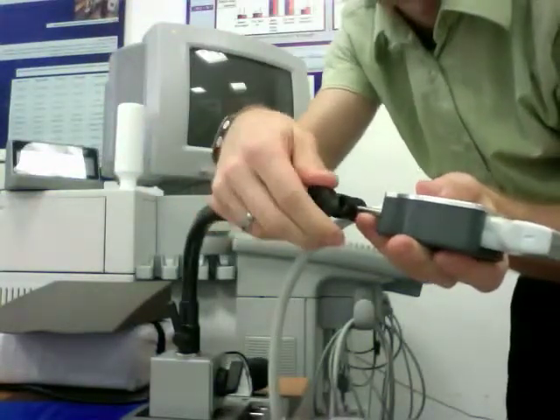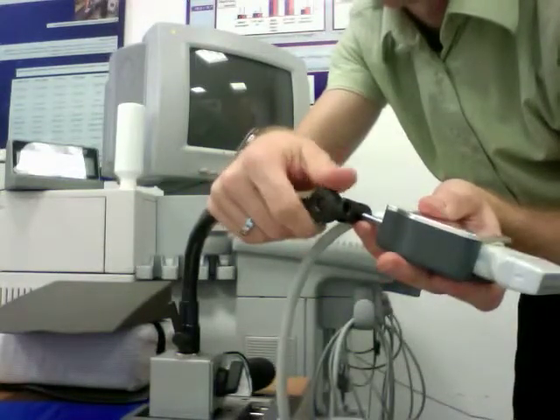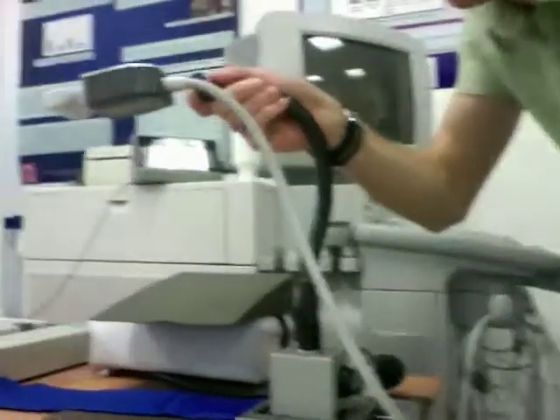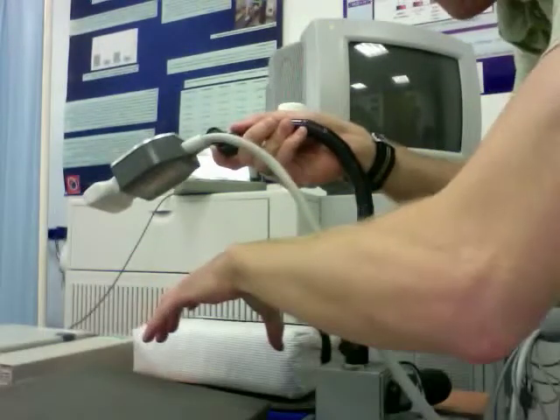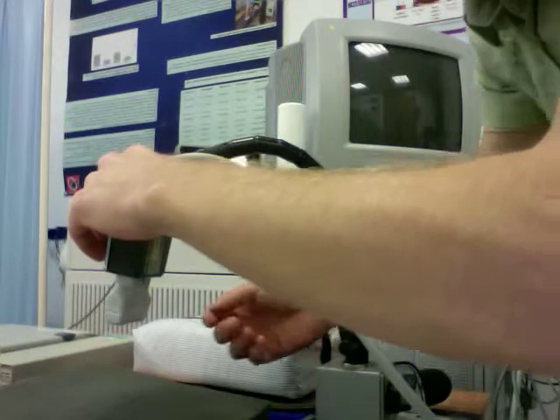There's a pivot point here for the probe to translate in that direction. In general, the arm of the individual would be laying across here, with the forearm right here. And the brachial artery would be positioned kind of like that.